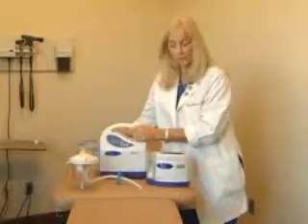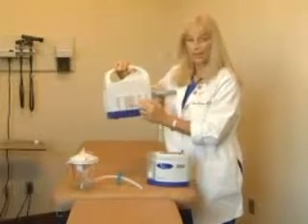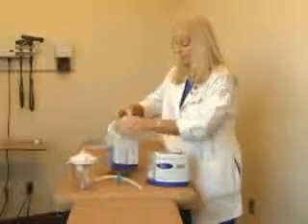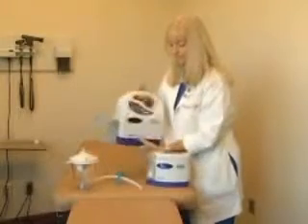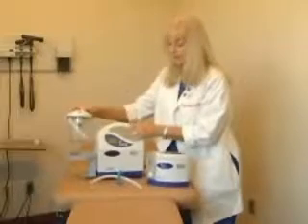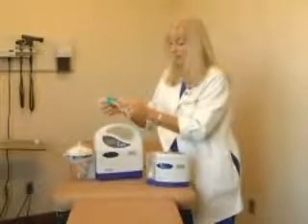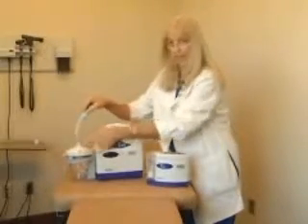Assembly of the Pro 3 starts with the application of the ring holder on the side. You'll notice grooves in the back as well where the ring can be attached to hide the canister. By placing the canister on the side, you will attach the external filter, which has a one-way valve, so you have to make sure that the blue side goes to the blue facing of the pump and the white side goes to the white lid of the canister.